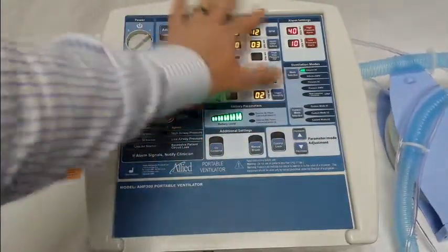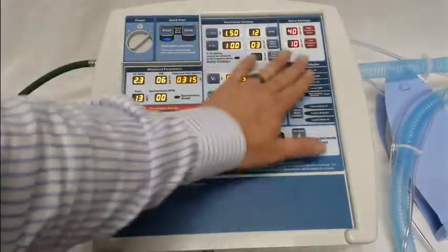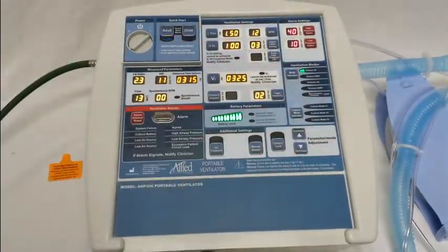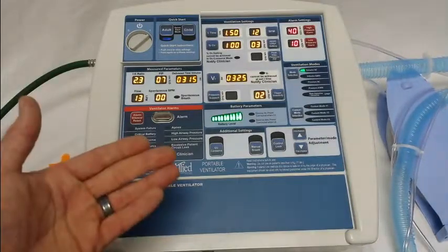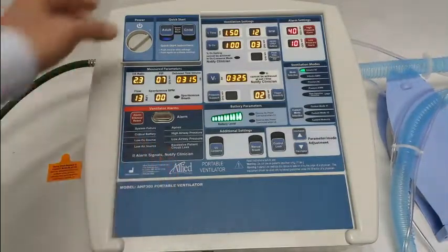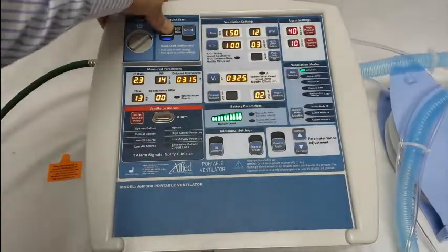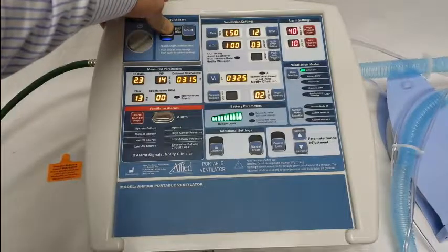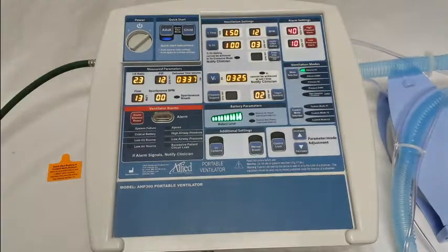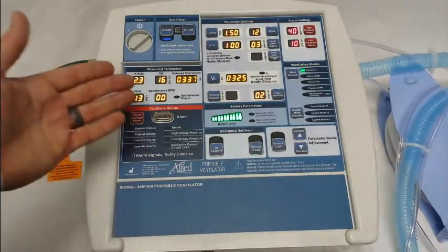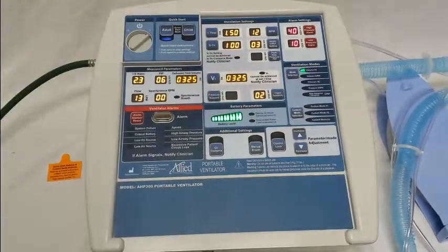You have all your ventilation settings, all of your alarm settings, and your ventilation modes — all can be changed to whatever you'd like. Whenever you're ready, you simply hold the adult button for two to three seconds. You'll hear a beep, and you've saved your protocol under the adult quick start mode.